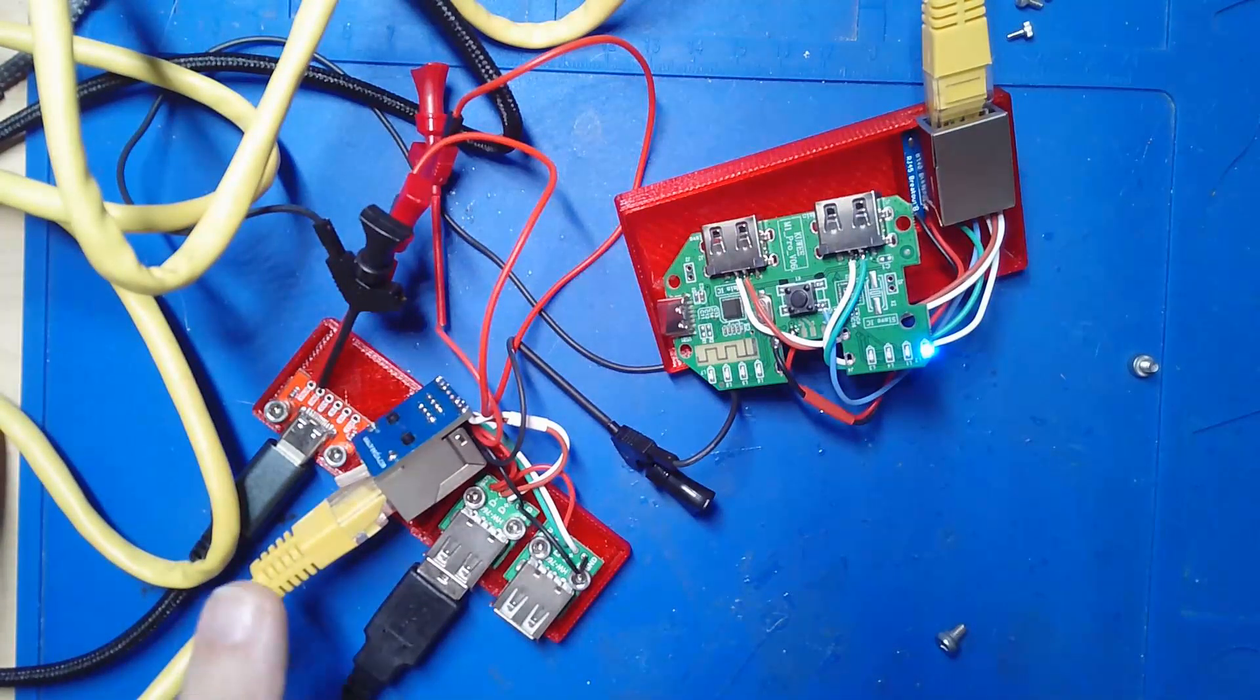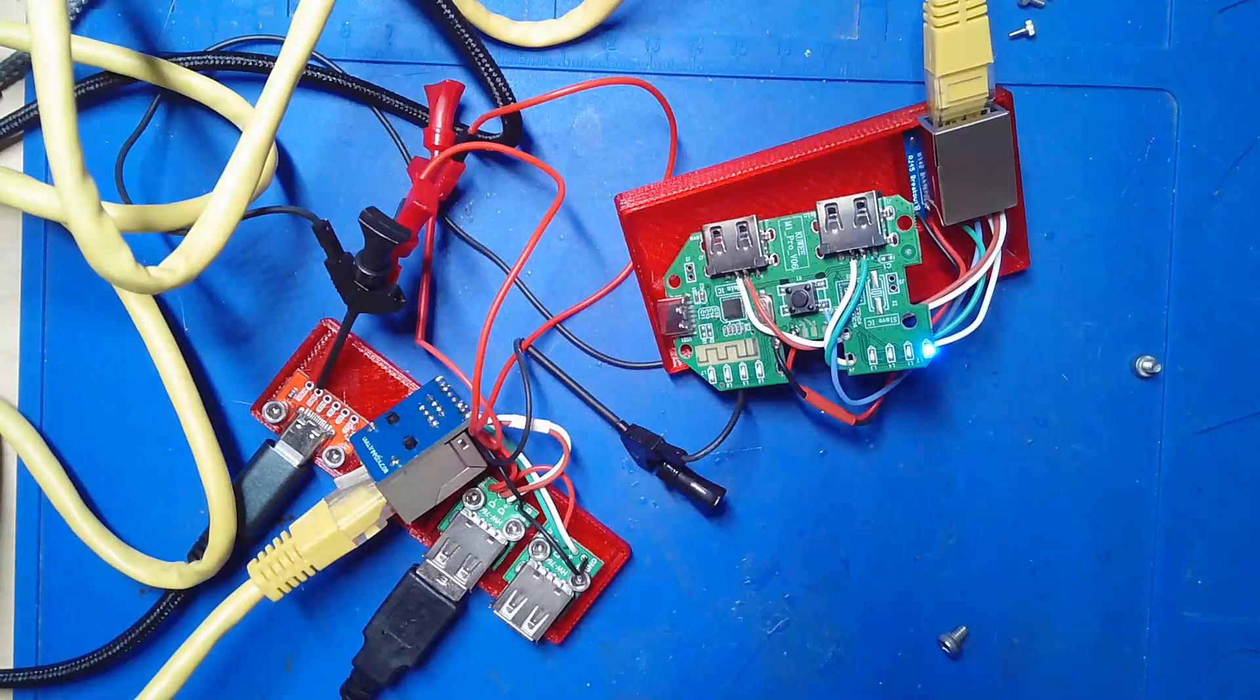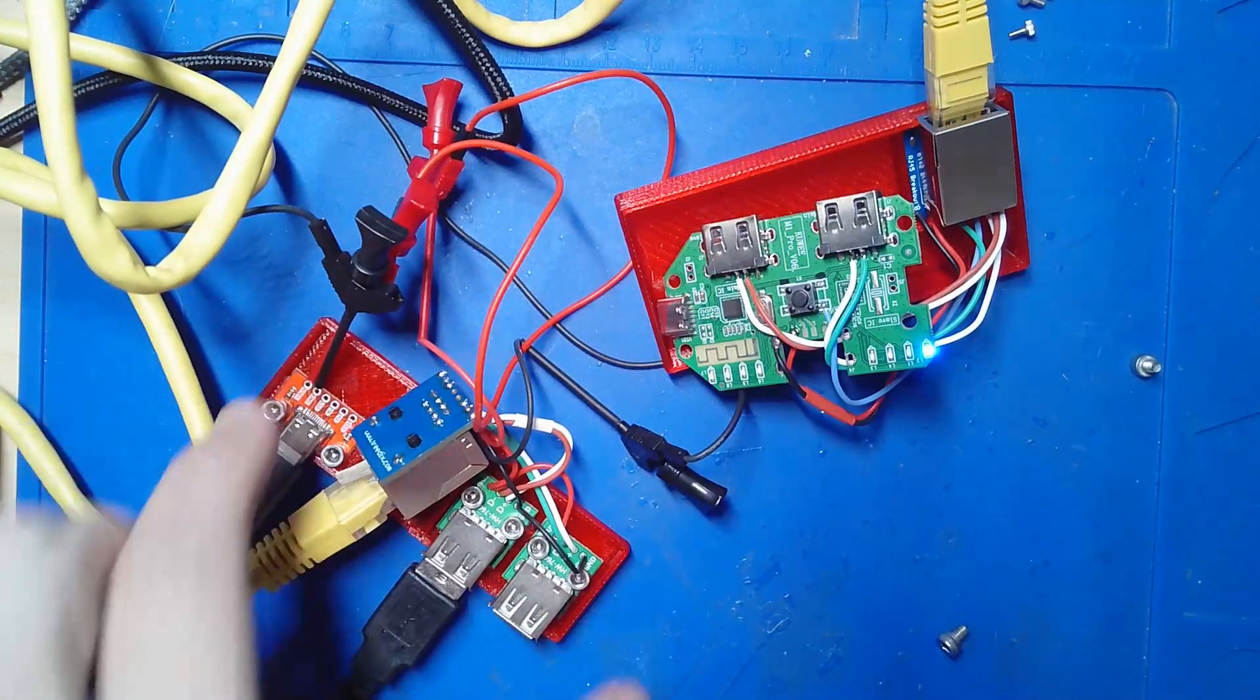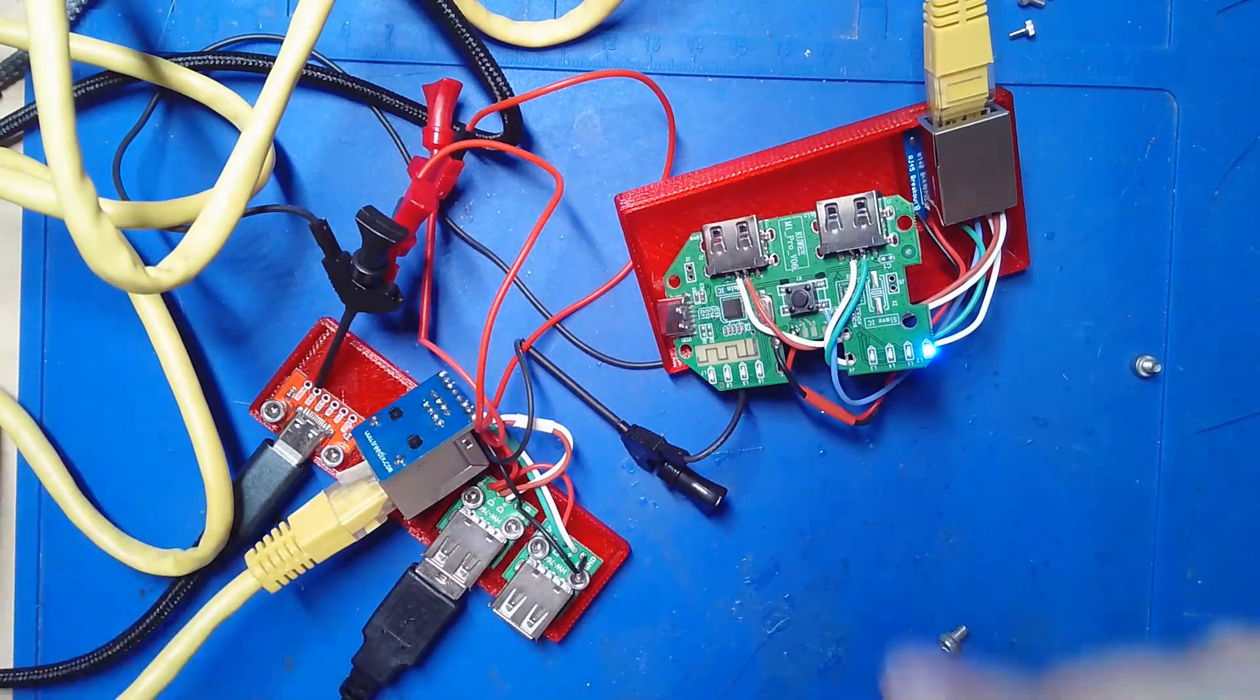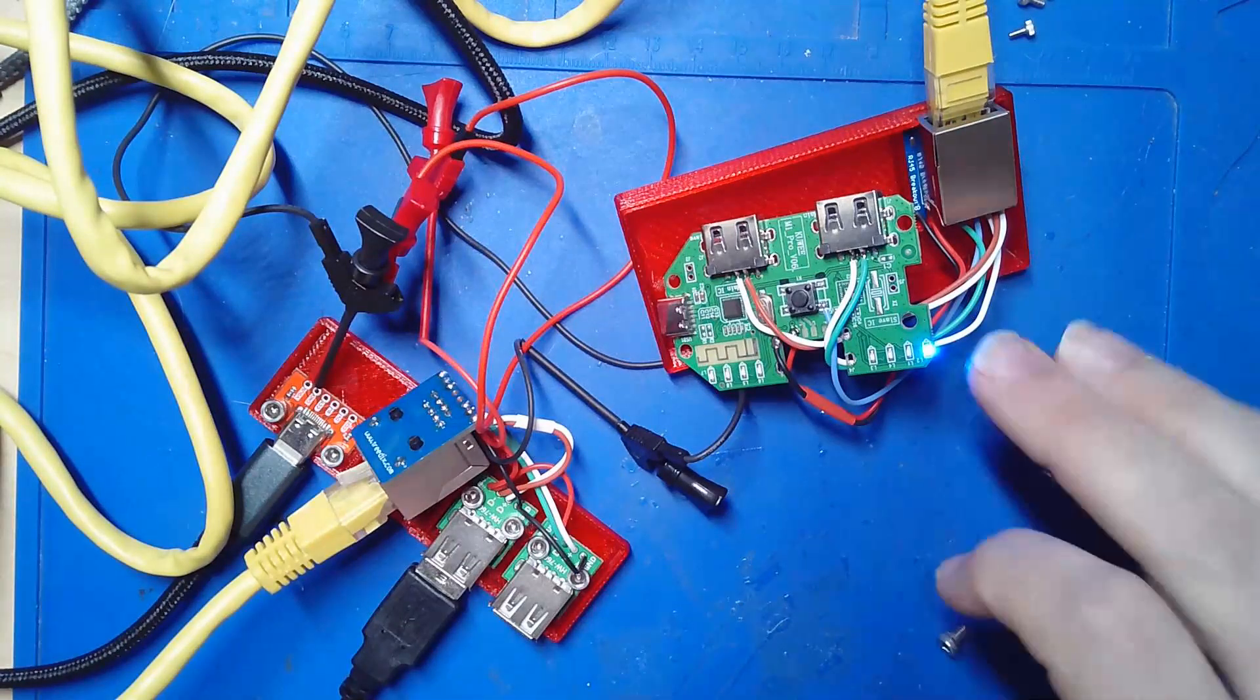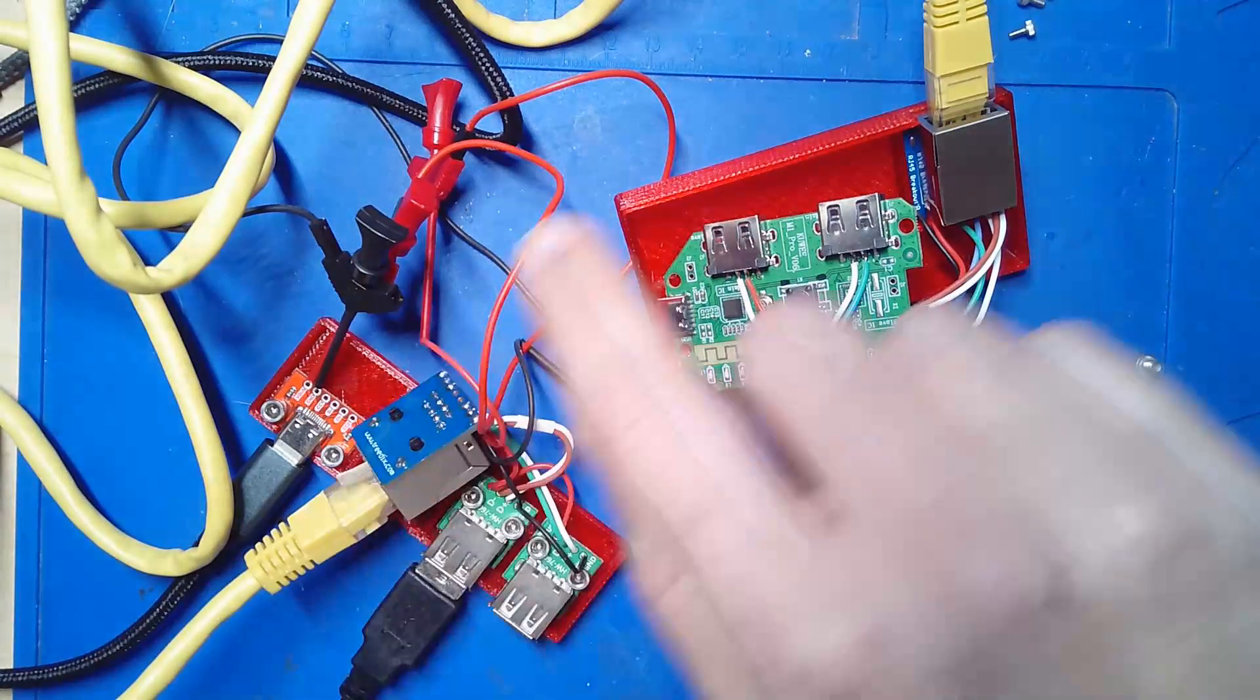What is not here yet, and this is why I have these test lead wires in here, is there will be two 3.5 millimeter jacks in this unit also. And one of them will be used to toggle the power on and off, so it will turn on and off the power. So if there is some sort of power outage, the user can physically shut off the power so this does not drain their wheelchair.